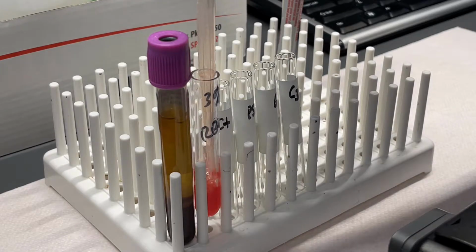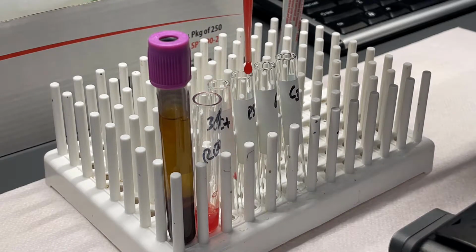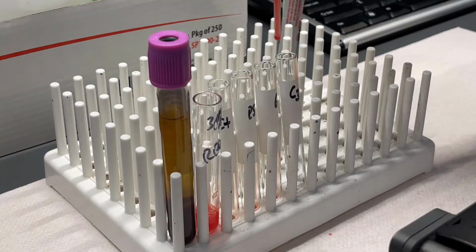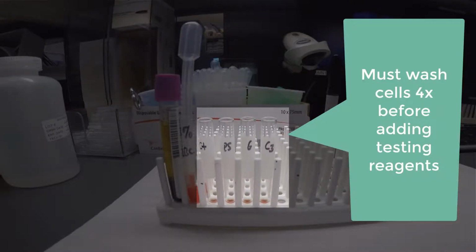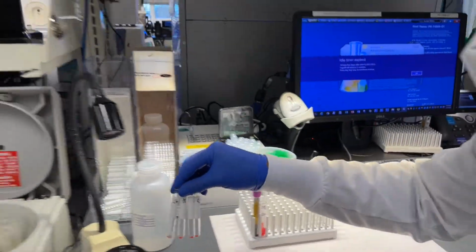Next, a 3 to 5% red cell suspension is made, mixing the patient's red cells with buffered saline. 1 drop of the suspension is added to each tube, then washed a minimum of 4 times with buffered saline. Cell washing can be performed manually or with automation.